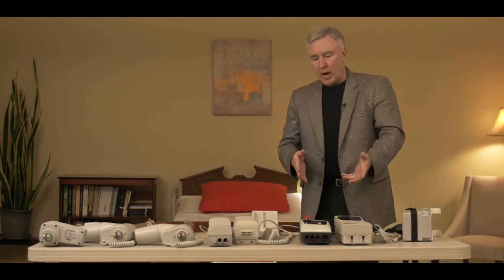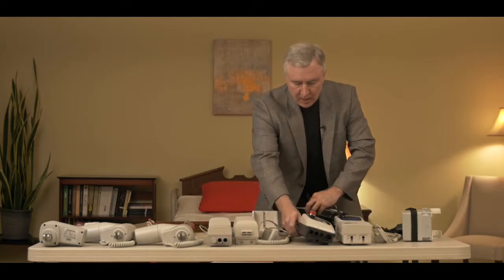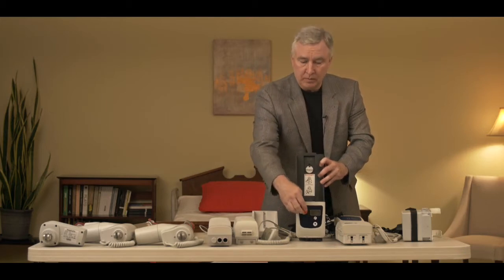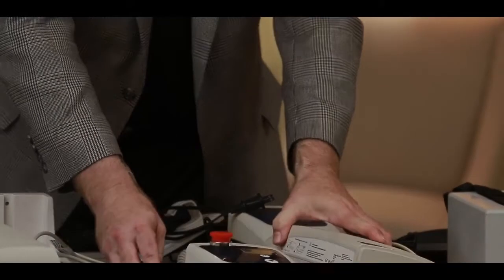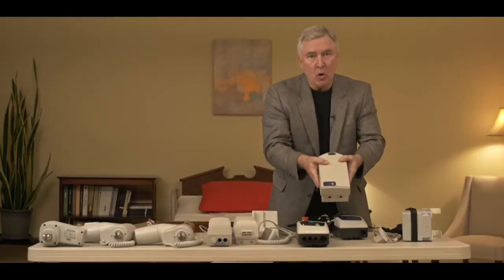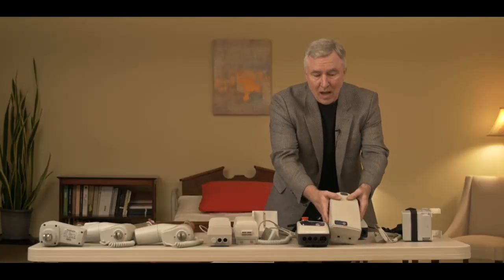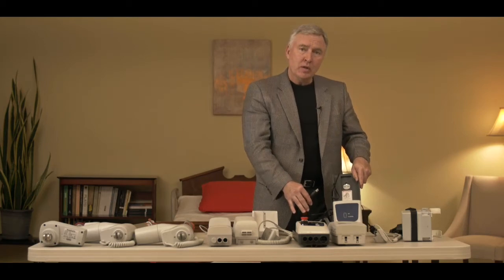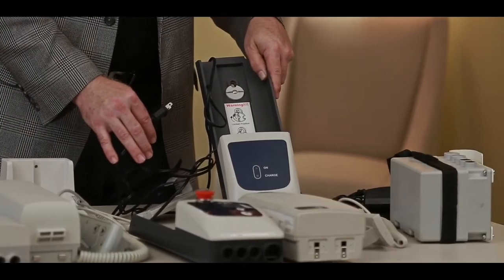The second style of electronics has a little bit different functions on it. The emergency stop button is in the front of the control box and the battery actually removes from the control box because with this style you can actually buy a wall-mounted battery charger to charge a separate battery for your patient lift.